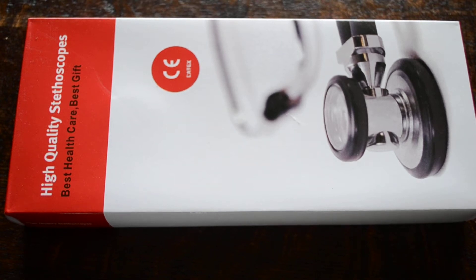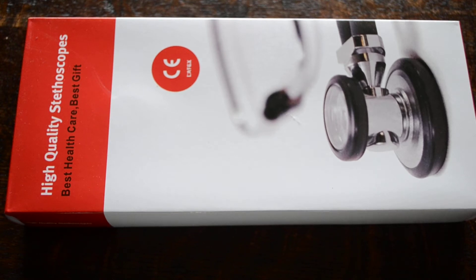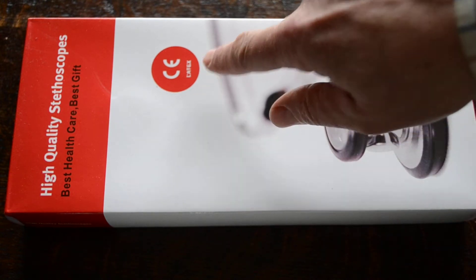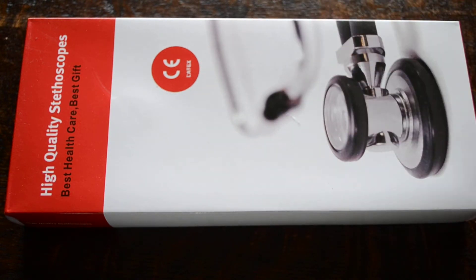Okay, welcome to this video. We're going to show you the ValueMed bubblegum pink tube Sprague Rappaport stethoscope. You're looking now at the outer box packaging. You see this has got a CE certification and a latex-free guarantee on there.